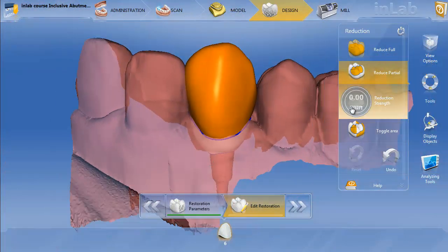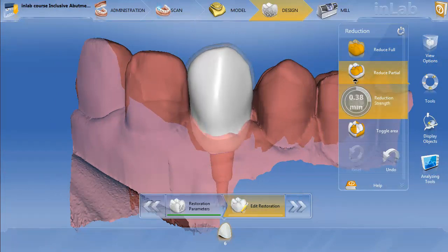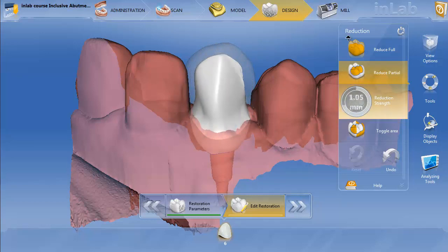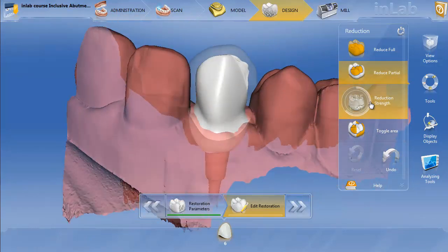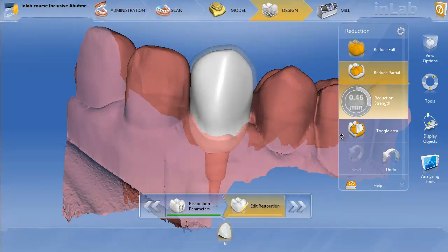So once we have that line, if I go back to the toggle it's going to reduce partial because I drew the line, and we're just going to go ahead and reduce it. Not a ton — just somewhere. I don't want to reduce it all the way because it's going to give me a really sharp area in the back. So we're not going to reduce it a ton. We'll bring it back — just about like that.